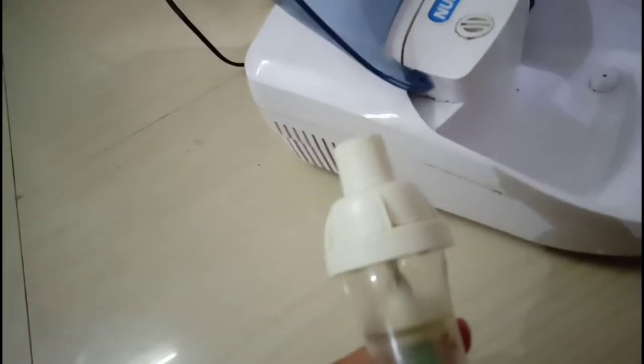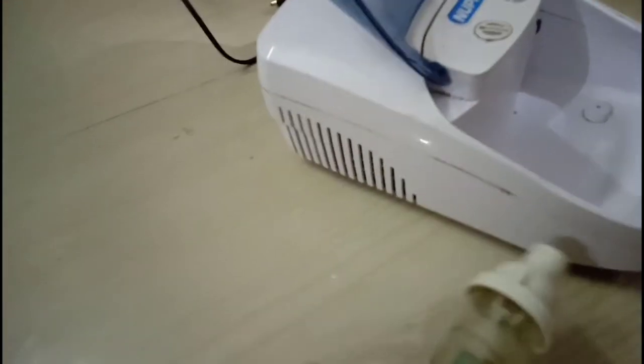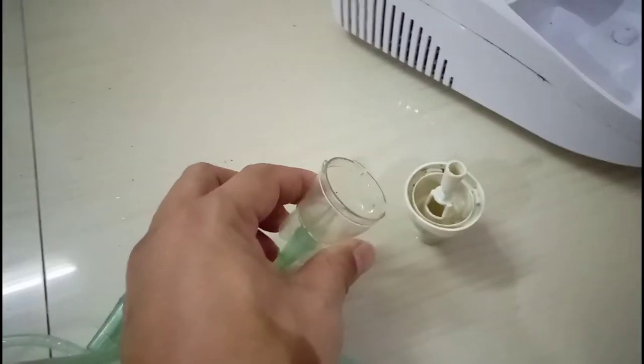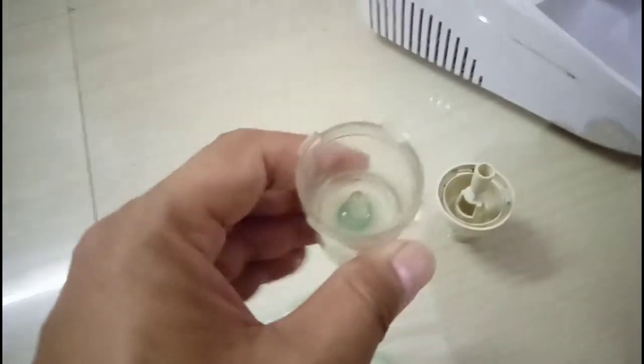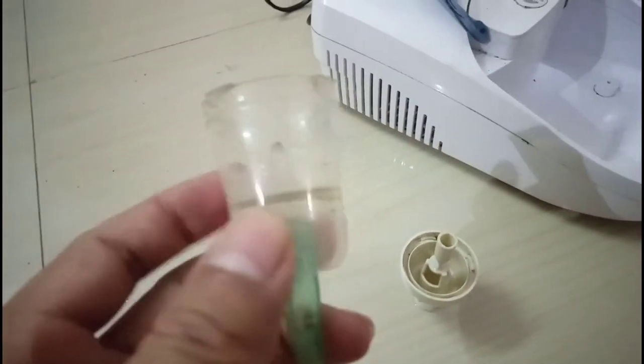This is the medicine cup where we will put medicine, and pumped air pressure turns this medicine into mist form.